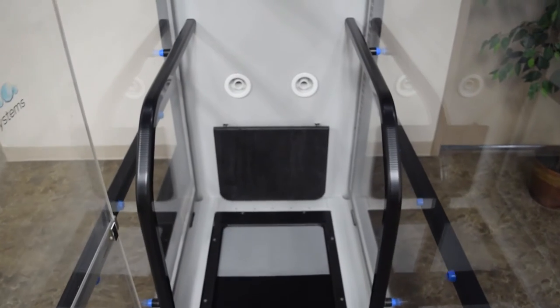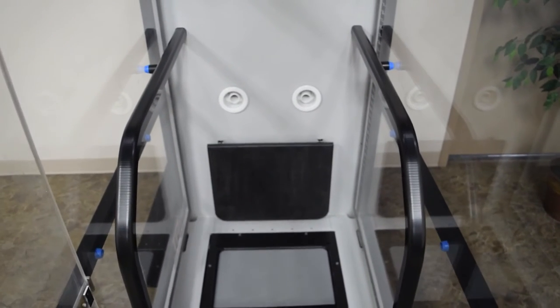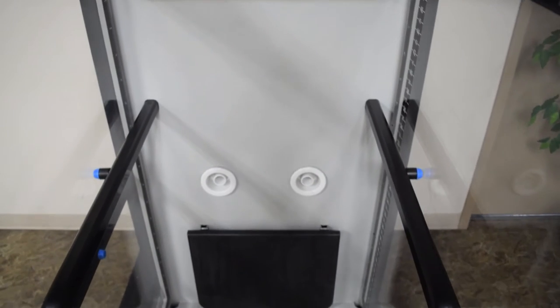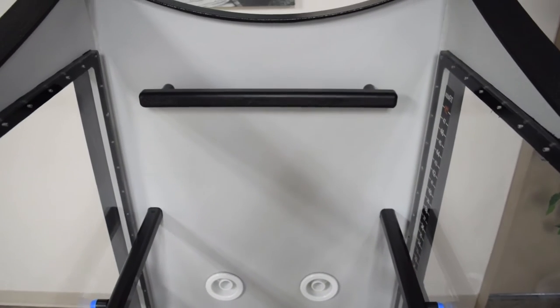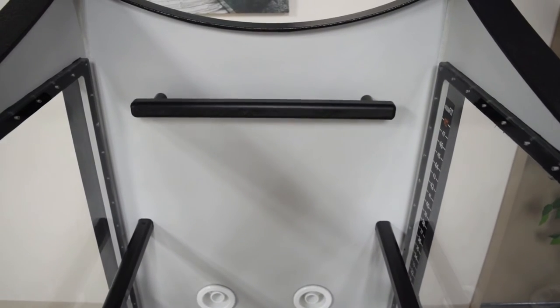The guide rails on the sides can be used to support while sitting down, to balance yourself while walking, or use as an elevated support surface for stretching.